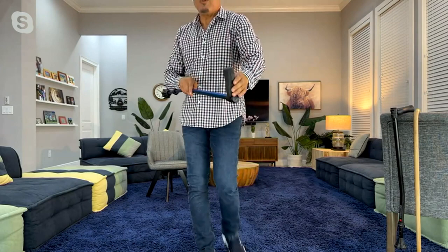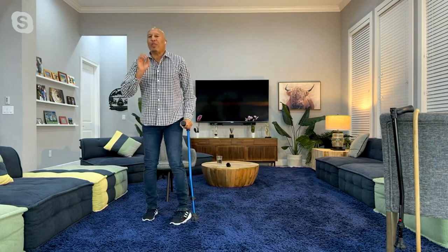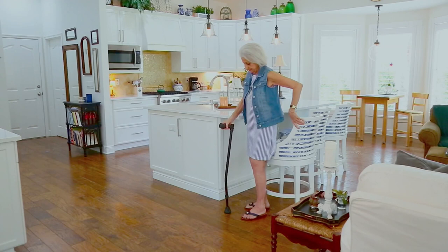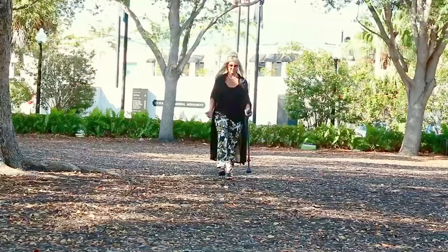Anodized aluminum. When you walk, you have confidence — the confidence to move around and put your weight on it. You know that feeling when you get your hair done or your nails done, that symbol of pride and that extra boost and lift? This cane will give that back to you, because the cane you're using right now doesn't have that. I promise you, if you look at this cane for a price of $39.95 — which is crazy — but QVC can do this because of the volume purchasing.